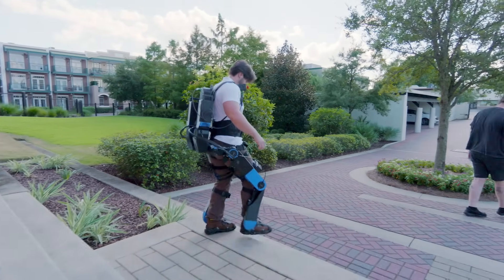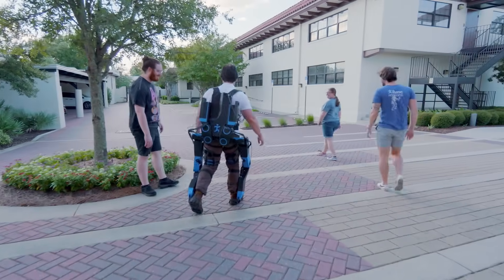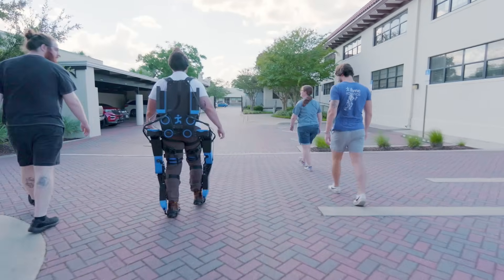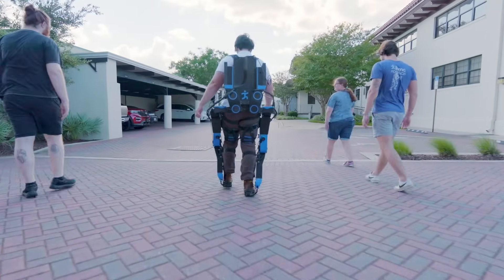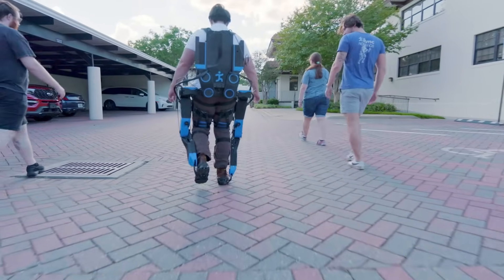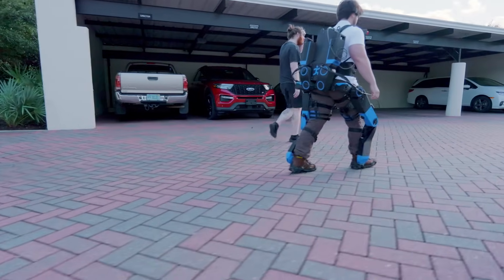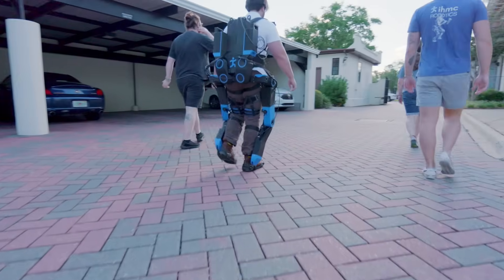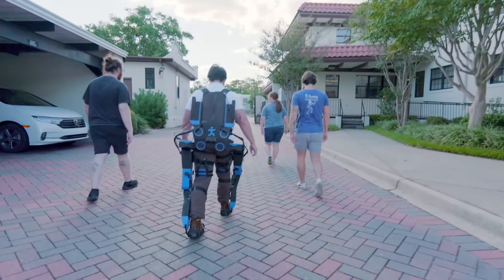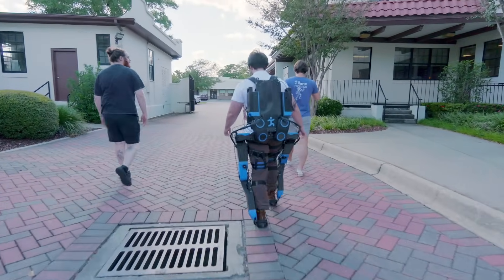Walking around outside, you don't really understand how uneven the pavement is. Because the suit is moving in certain ways on your body, it's interesting to feel how it moves over that uneven terrain. In our controlled lab environment with mainly a concrete slab floor, you don't get a lot of variation. As I walked across this varied surface, I realized that we thought we would need to add more degrees of freedom to handle rough terrain, but that may not even be necessary because I'm walking in a balanced fashion here.